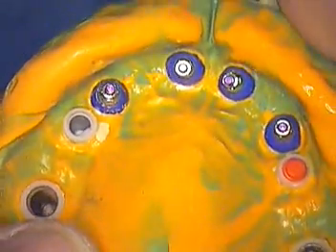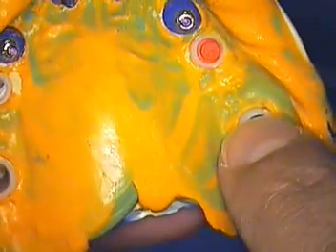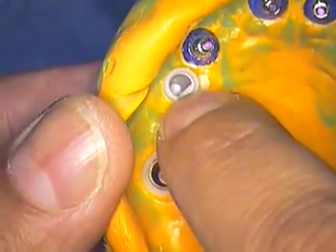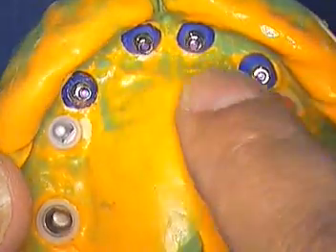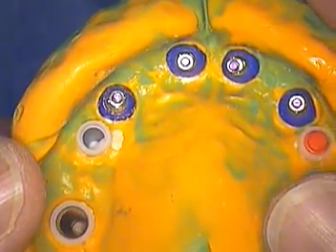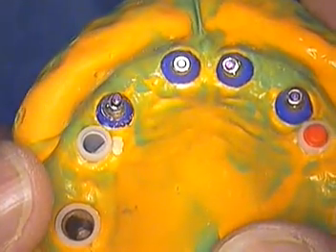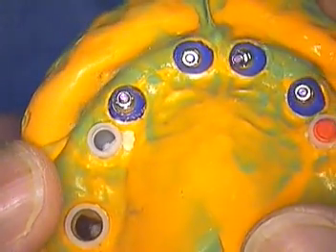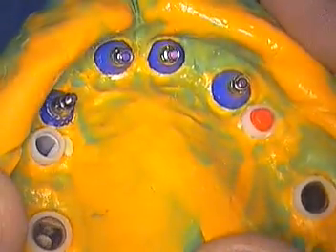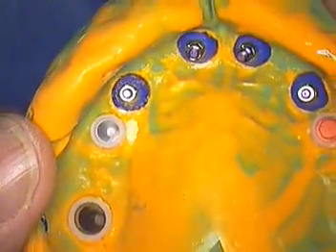Comparing this one now with the bone level — this one happens to be a final impression utilizing the bone level. These are just working models to give you an idea. The contrast between the Straumann regular solid abutments, where the margins are very subgingival, as compared to capturing the soft tissue and being able to actually design the margin level where you need it the best. It gives us a fairly easy, user-friendly impression with no tissue collapse whatsoever and saves valuable chair time.